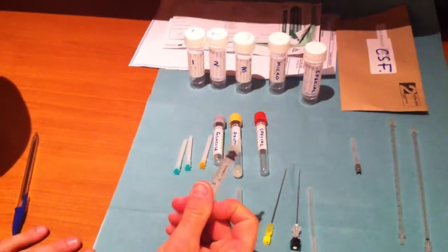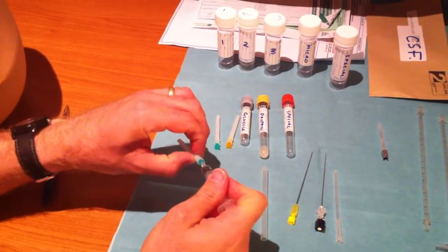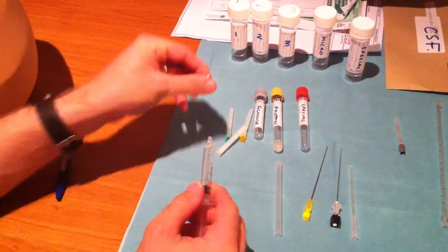You need a small syringe to inject your local anaesthetic. So you need one needle for drawing up your local anaesthetic and that should be discarded.